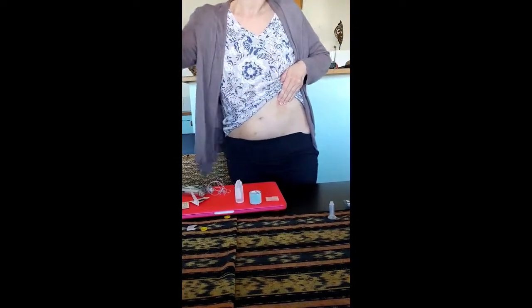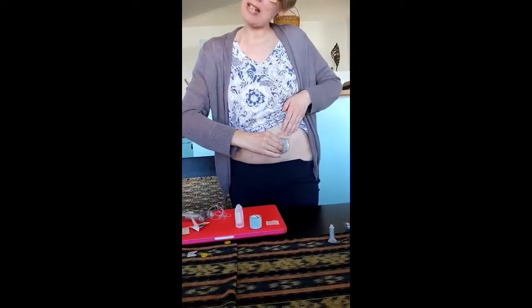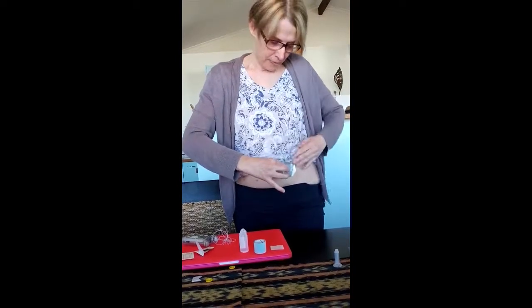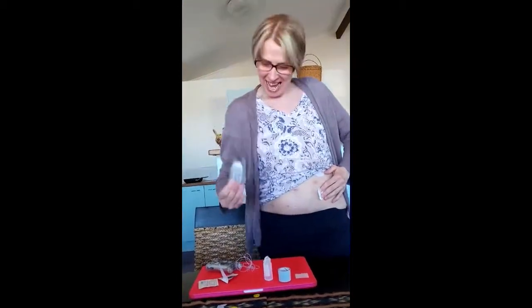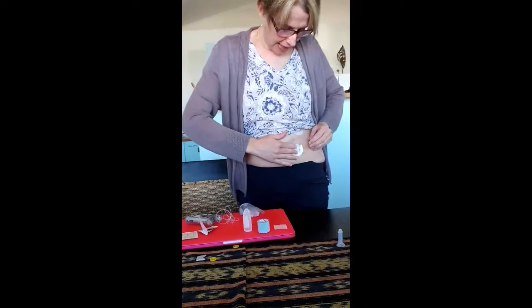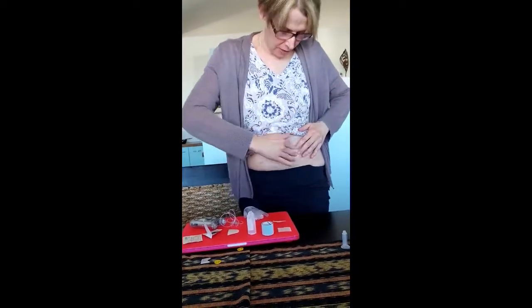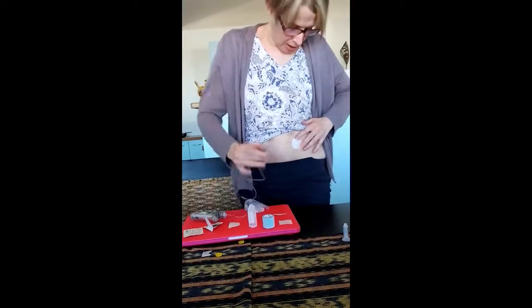I've felt around and decided I'm going to go here — this is generally a good spot for me. I just use my hand to wipe that. This little device has two feet at the bottom and you place the feet totally flat, and it inserts the 13 millimeter needle. I put my fingers down, apply pressure, and pull it out. Then I peel off the adhesive and push that back, peel off the second part of the adhesive, and make sure it's on nice and flat.